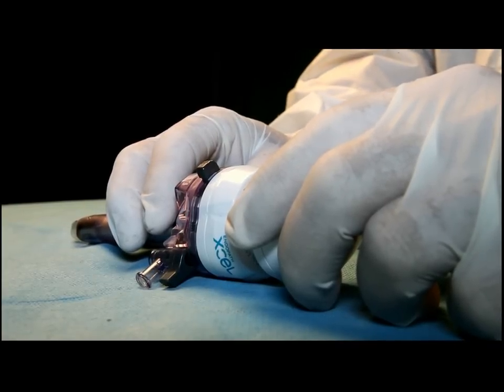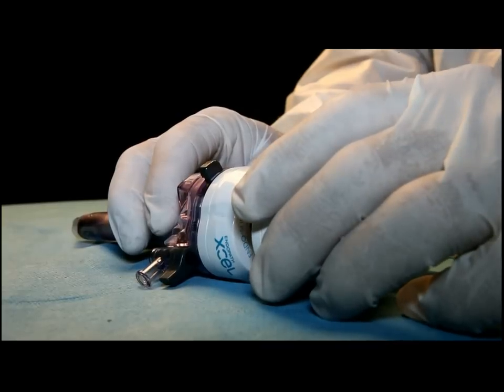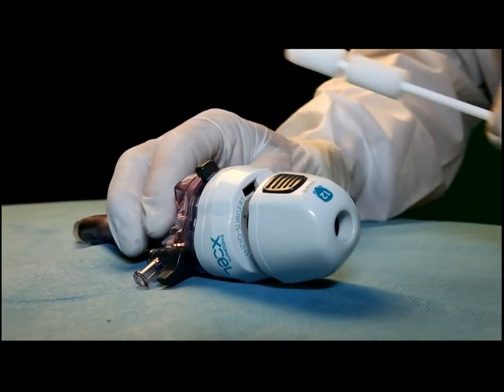Advanced Medical Innovation would like to present a new port cleaning patent-pending device, which we call the DELV.